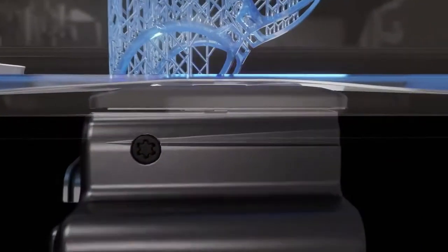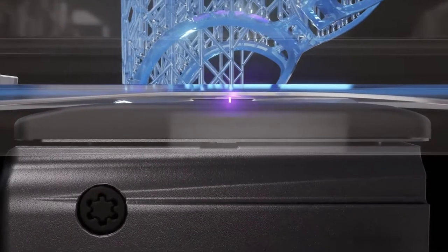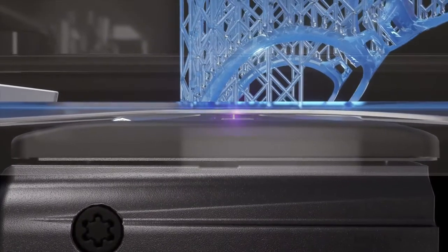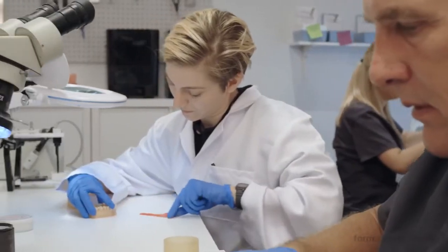And a refined, completely self-contained new light engine ensures the 25 micron XY resolution laser moves consistently across the print volume, delivering dental parts that are precise and extremely accurate.